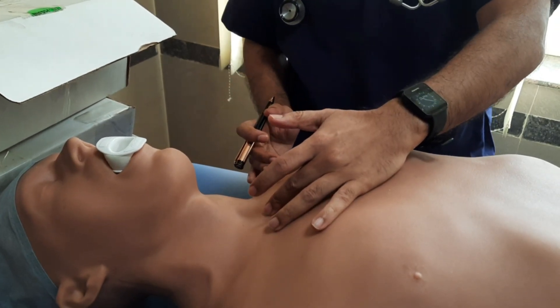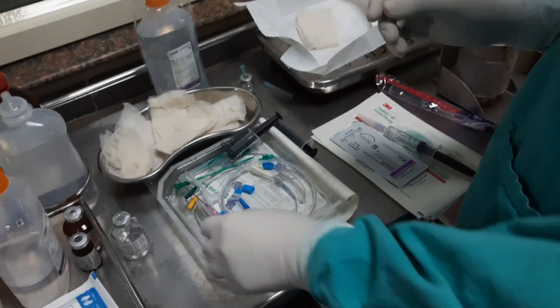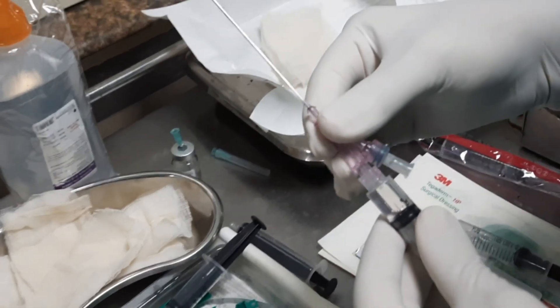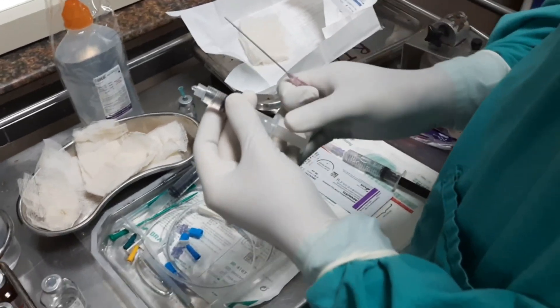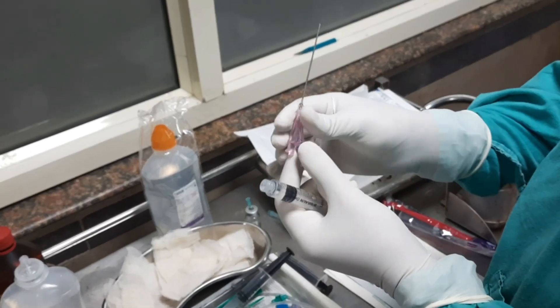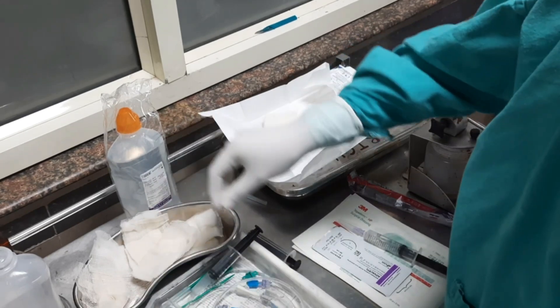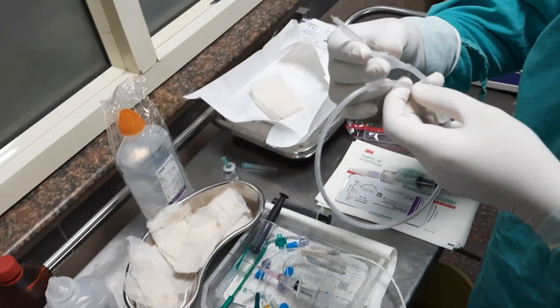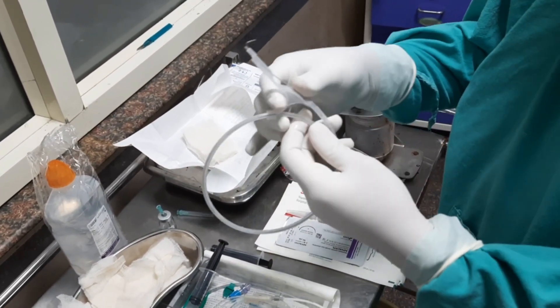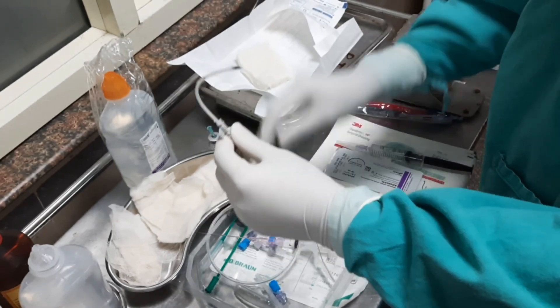This is our central line, which is 8 French, used in adults, and it has four ports. In the central line kit: a 5 ml syringe filled with 1 ml of heparinized solution, and an 18-gauge needle with two ports — one side port and one main port. By the main port we attach the syringe; by the side port we insert the guide wire. This is the guide wire, which has a J-shaped tip to prevent injury to blood vessels.